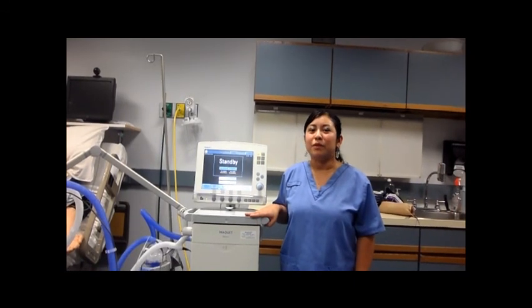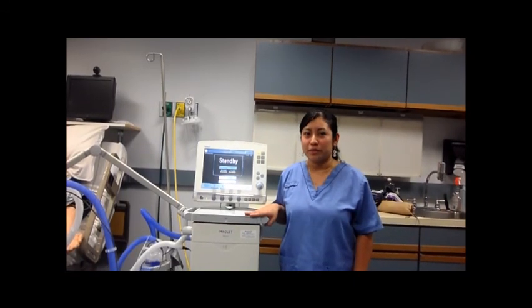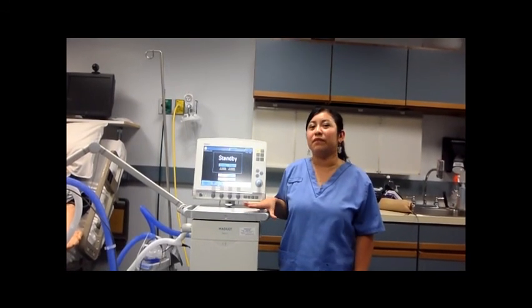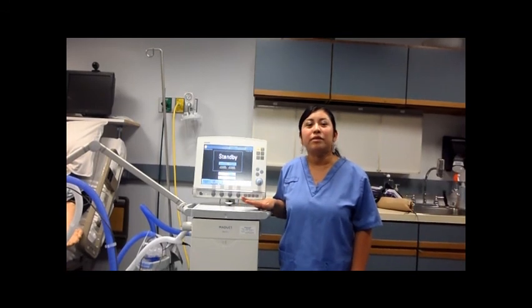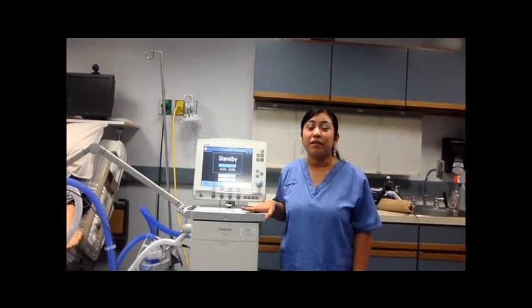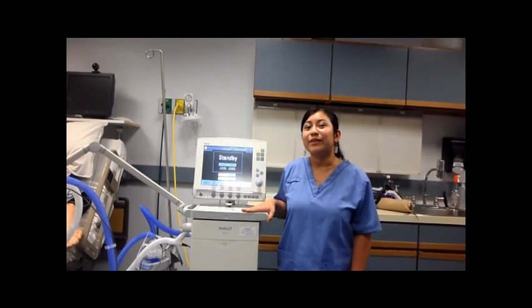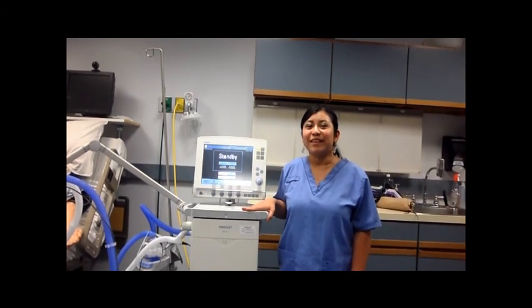In most hospitals, the one you see the most is pressure support. And that is just because most of the doctors, that's what they feel comfortable in. But volume support is as effective and can also be used in order to extubate the patient. So this concludes our mode of ventilation video.